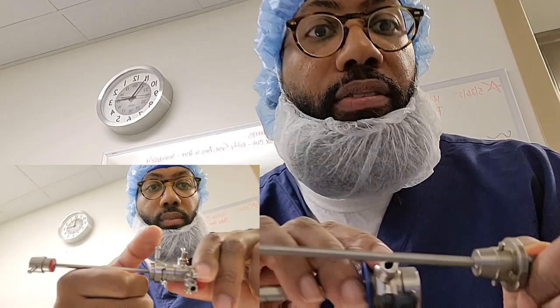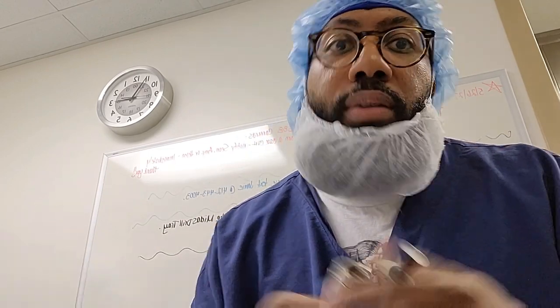And your second part: this should never be connected to it. A lot of times at the particular hospital I'm at, and a couple of hospitals I've been to, the sheath has always been left in it. People are unaware that this does come apart. The reason you may not know is because a lot of people just don't do the tray — they don't know how to disassemble it. You can't fault somebody if they don't know, but what you could do is ask. That's why it's important to ask, because the people who need this in the tray and sterilize it and send it up will be the ones getting in trouble. Education does help.